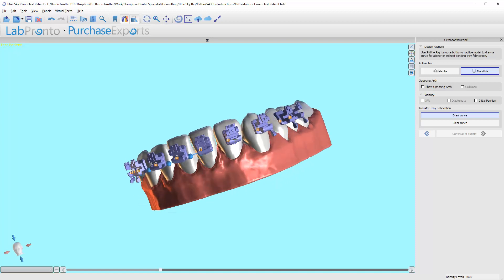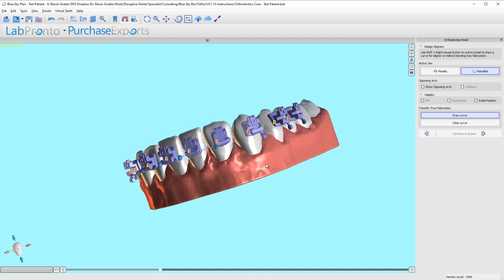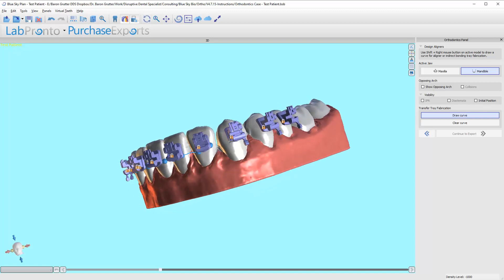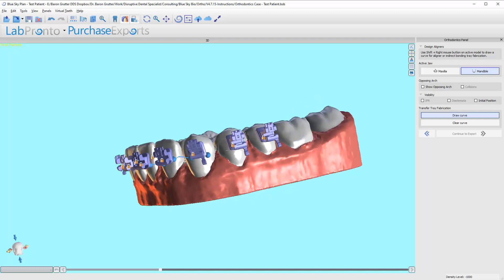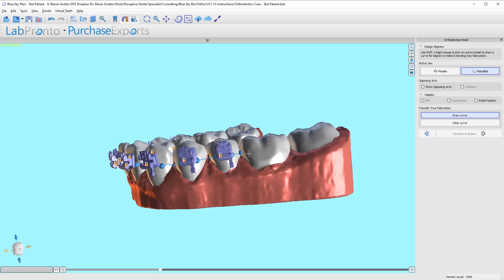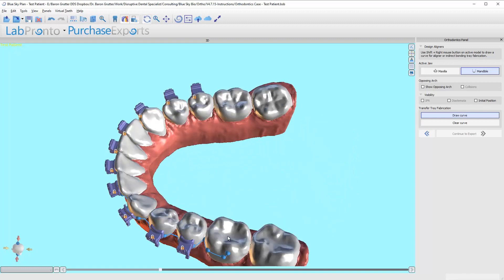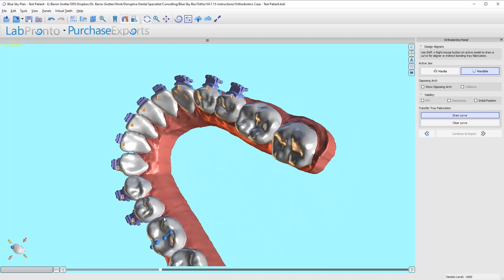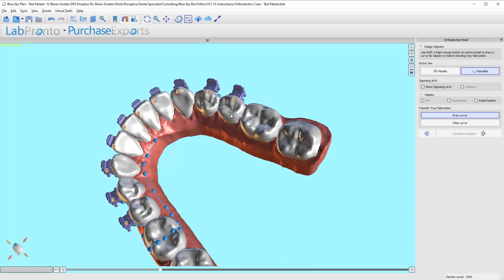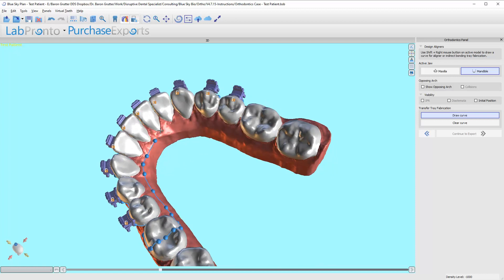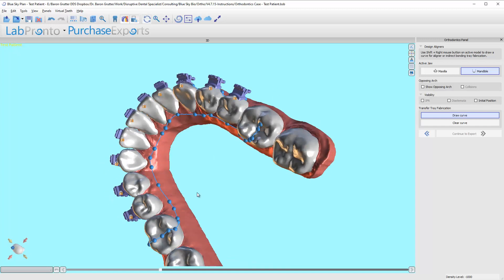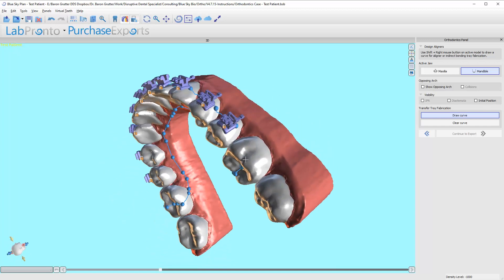It's easiest to slide the tray off, and it's generally more than adequately retentive of the brackets themselves. I think it's easier to stay close to the teeth if you can. I think that is the best approach.